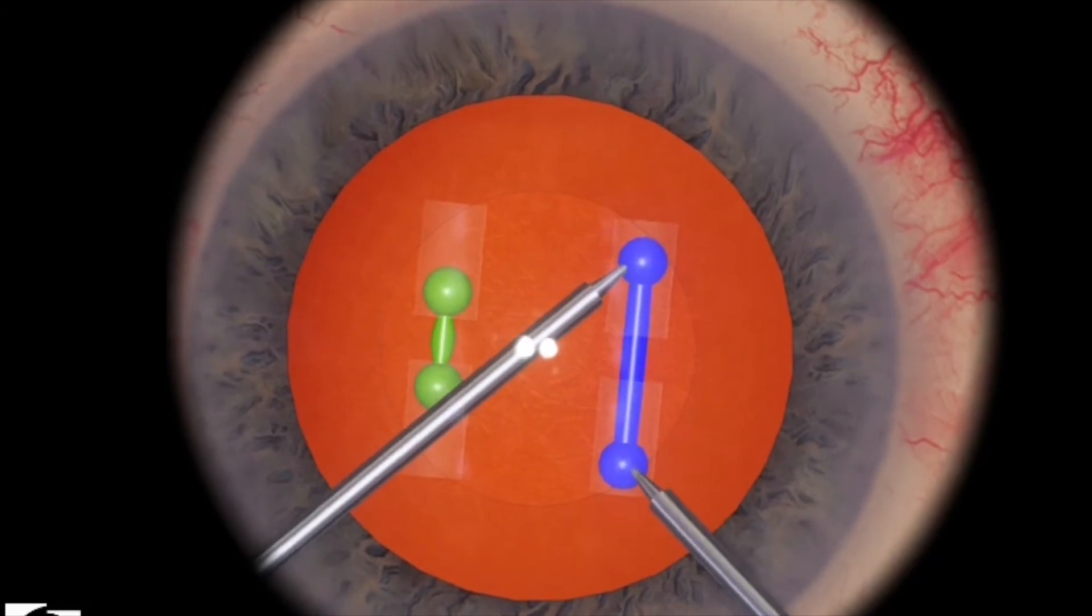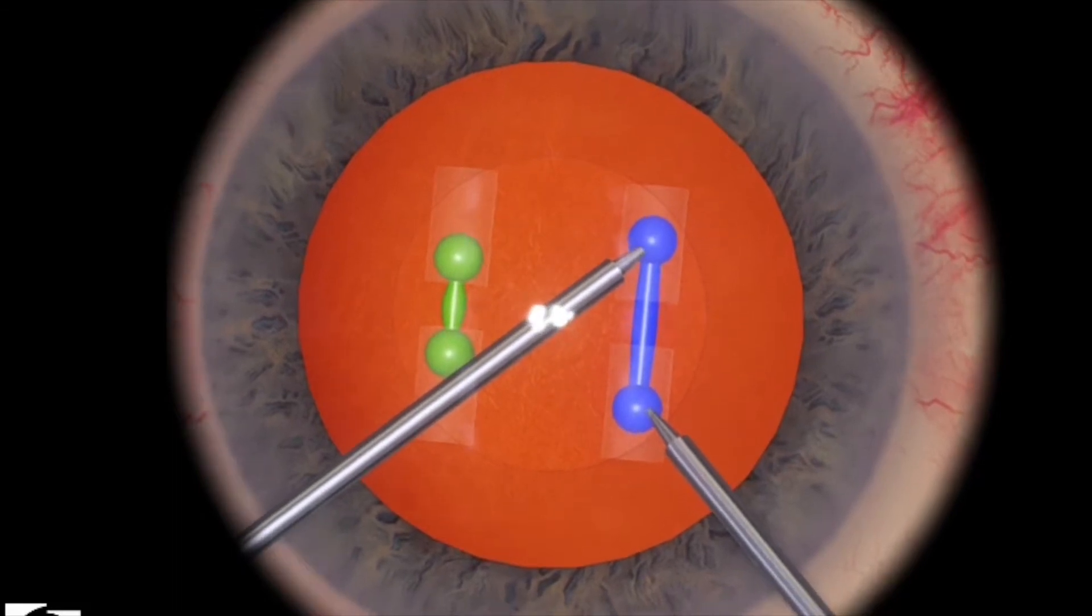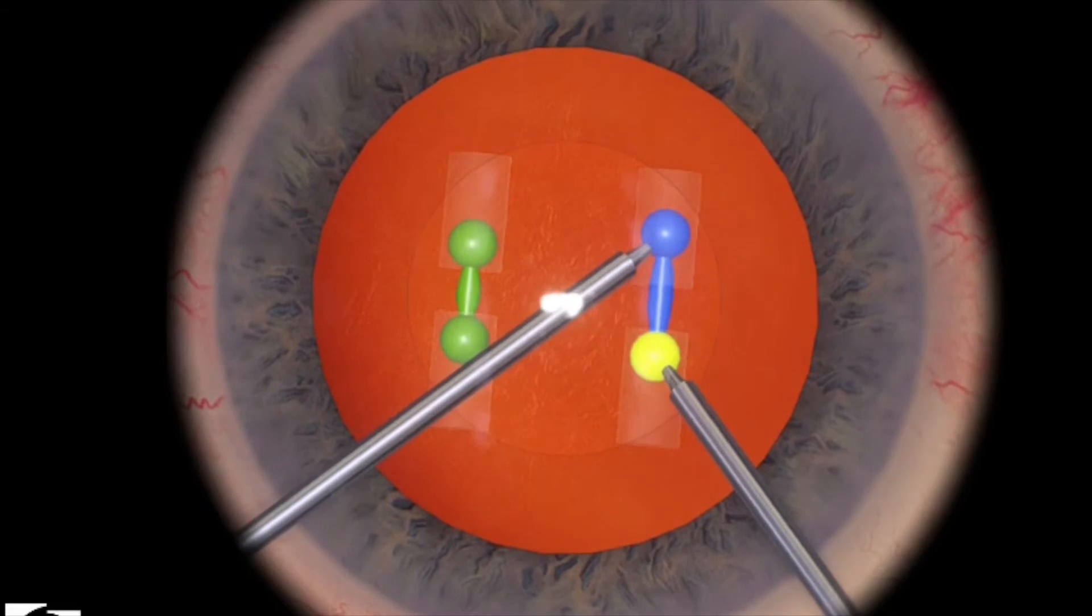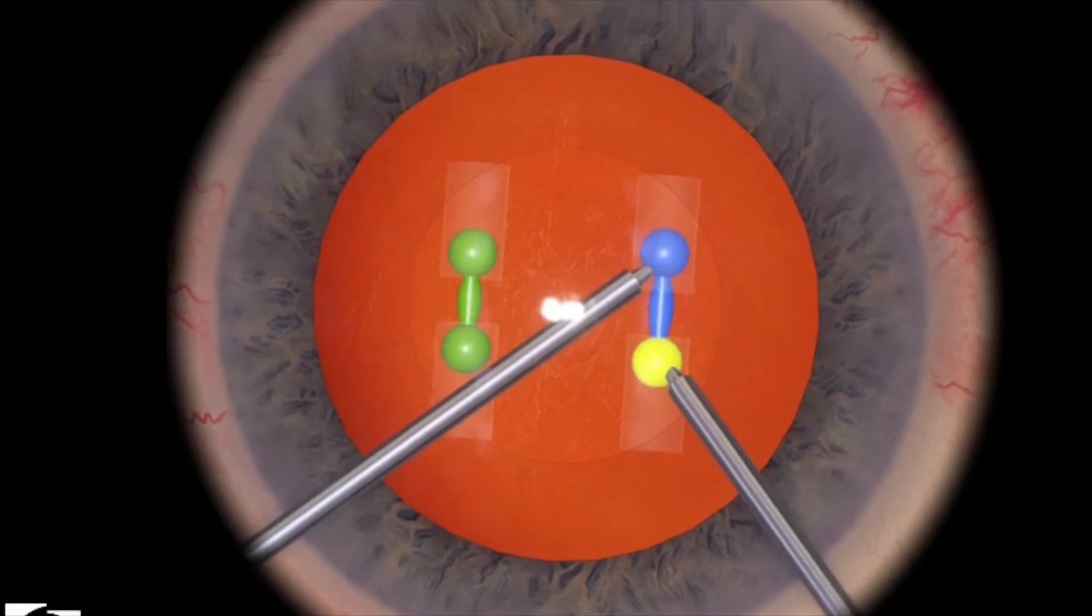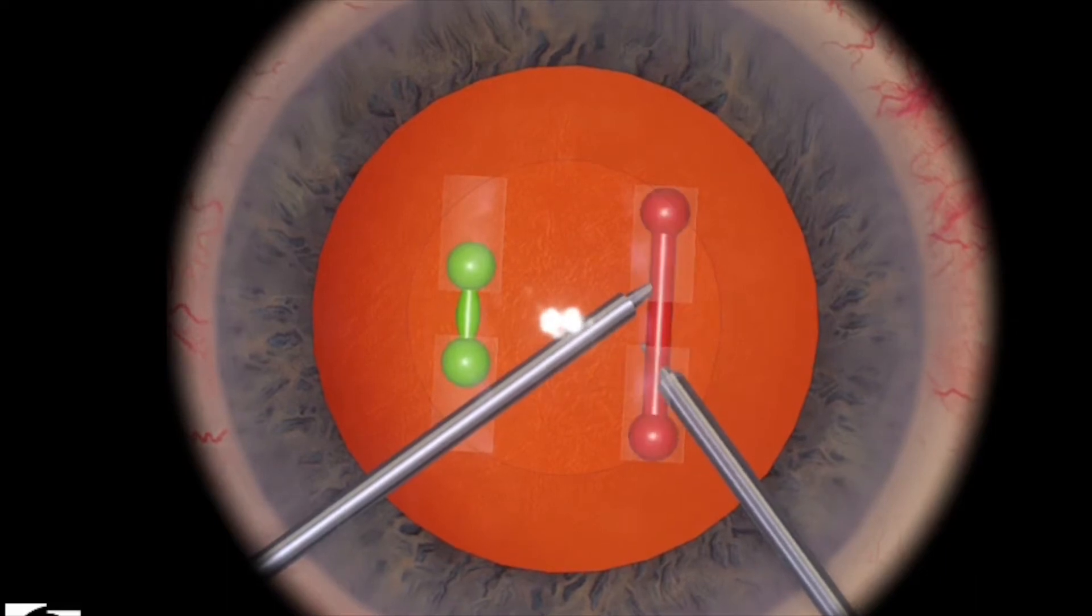You want to put all your attention and the focus of your eyes to making sure that both of the instrument tips do not leave the sphere, because that's the easiest way to fail the level or to not get 100.